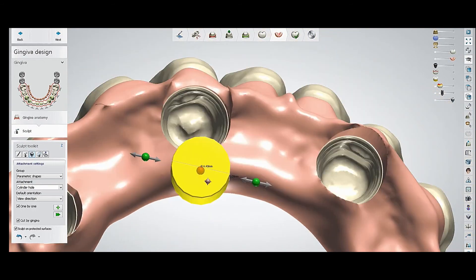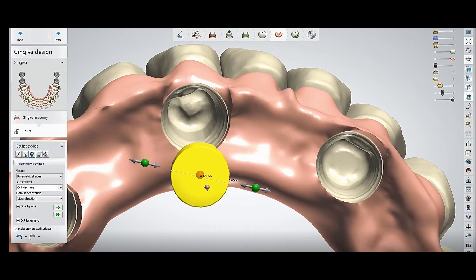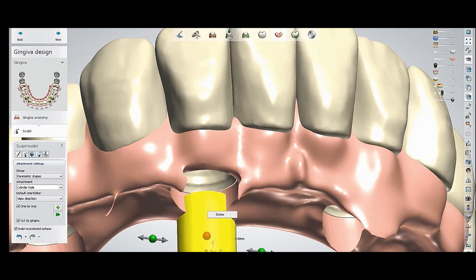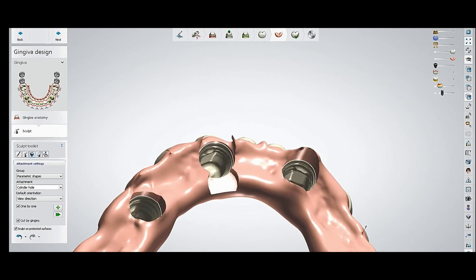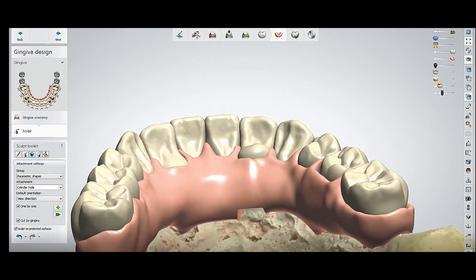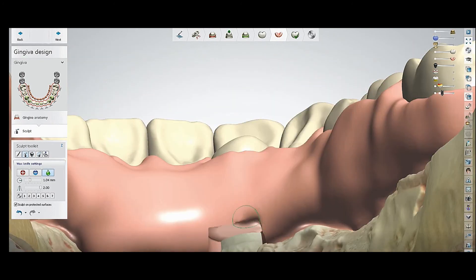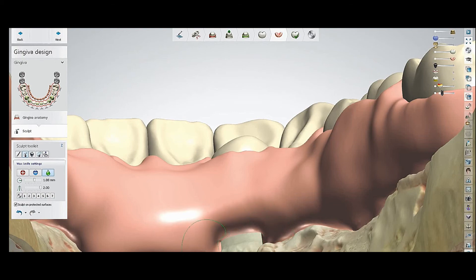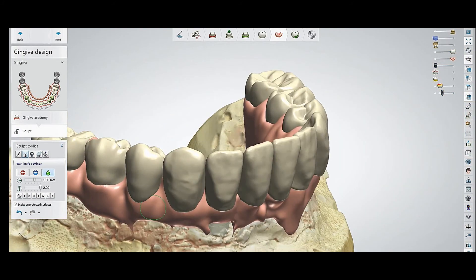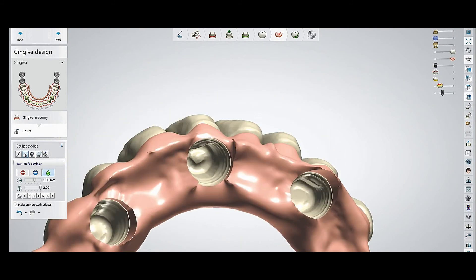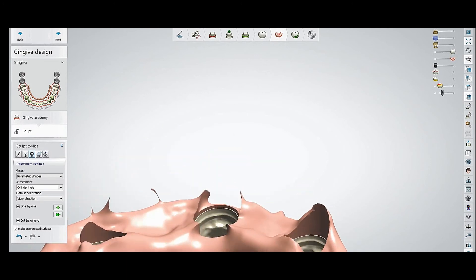If you are designing gingiva — this gingival face — you can cut this extra surface. You can also cut it after the milling, but it is better if we cut these surfaces during the design phase; it will be easier and give a more accurate result after milling and cutting. You can then smooth it. Step by step, using this tool, you can get rid of any area you want sculpted.